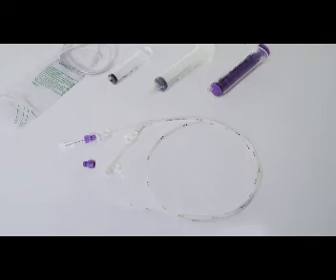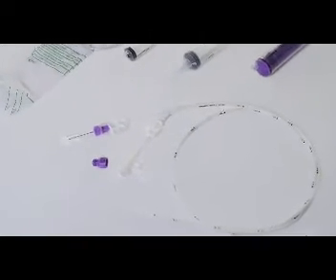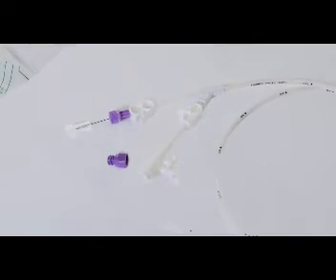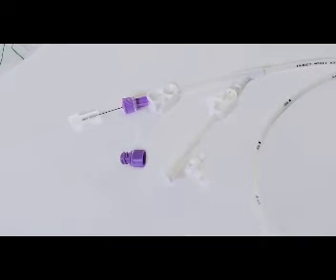We will learn how to use Compact Dualport, a dualport nasogastric tube that helps to simplify the administration of enteral feeding as well as gastric drainage by the use of one tube for both operations.